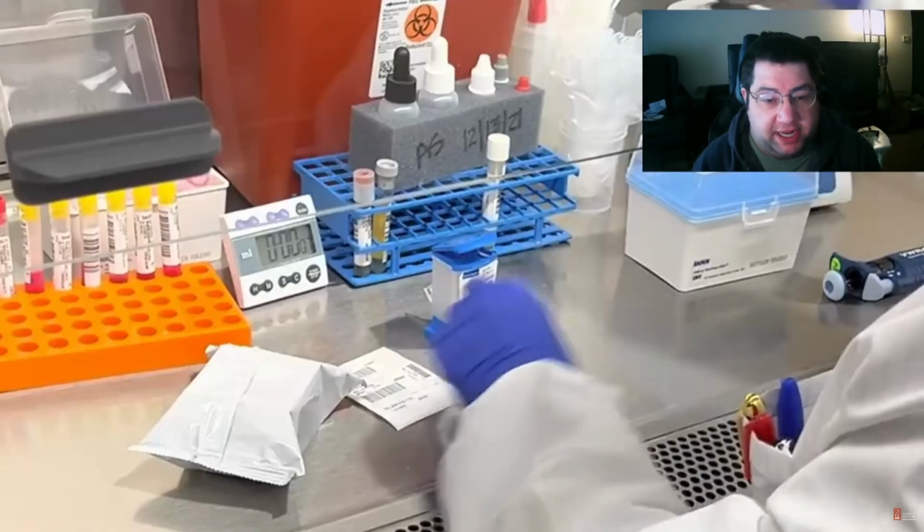Like they were saying, it can do MRSA testing. I can't remember if they do blood culture IDs or not, but it can do C. diff testing. That's pretty much a staple now in most hospitals. COVID, flu, RSV, called multiplex testing or threeplex testing.